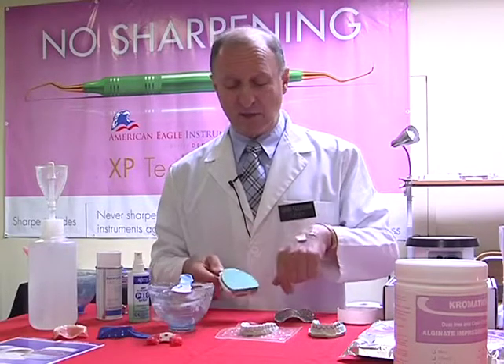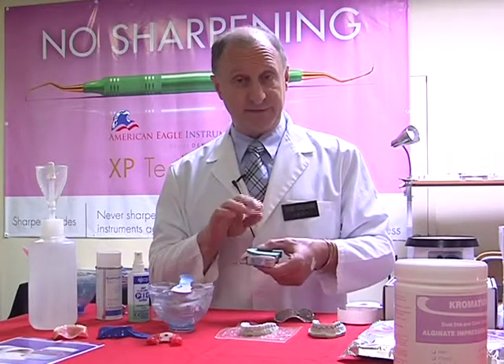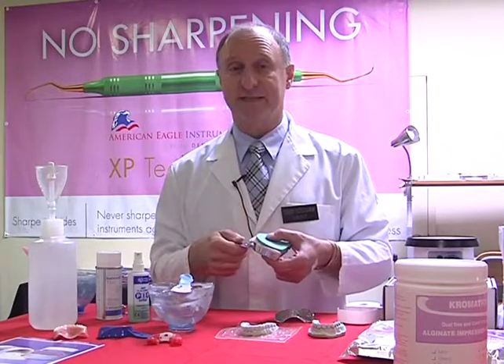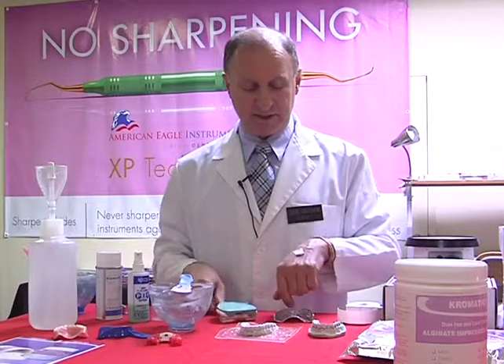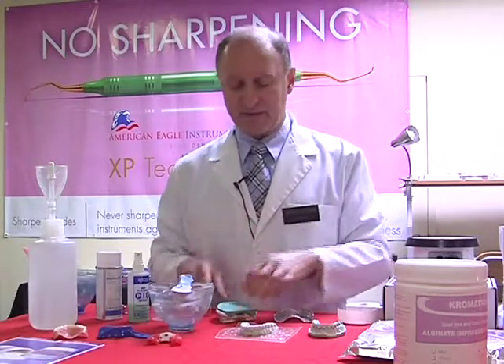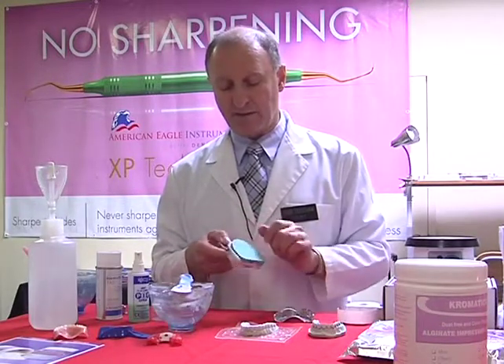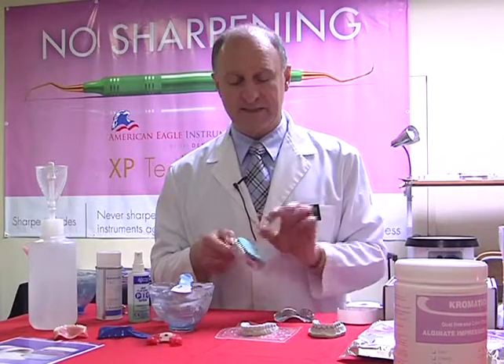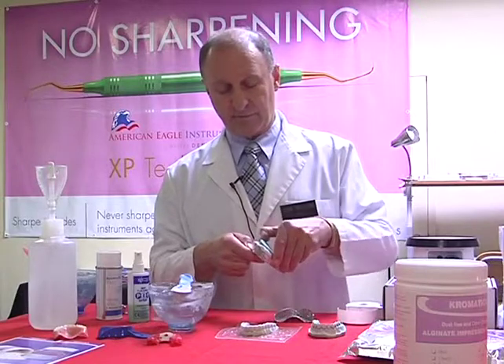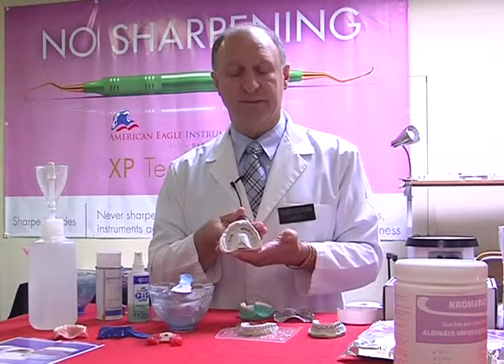After the 20 seconds, we'll see the material again starting to turn white. We know the material's set. Now, of course, if this was inside the mouth, the warmth, the humidity of the mouth has a tendency of accelerating that set. So I'll just leave this for a moment longer, and we can see that once the material's set, it can peel off without obviously sticking to the skin. The same case with our mouth. So I'll just let this a moment longer, and then we're ready to set and separate it out. So normally we would then withdraw from the mouth, and we end up with a nice, smooth, clean impression.